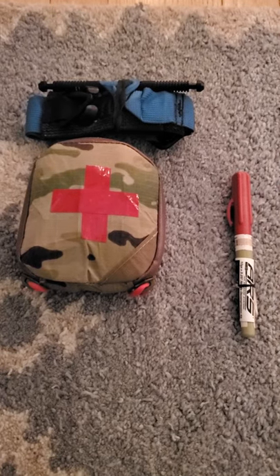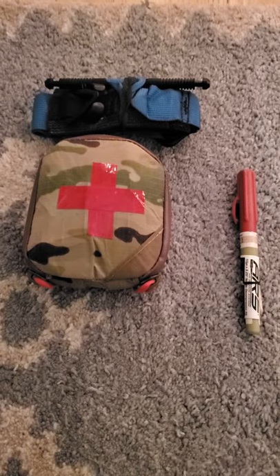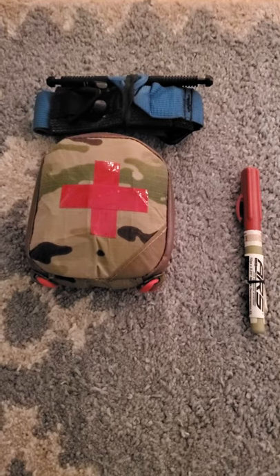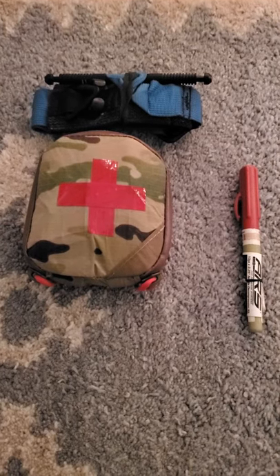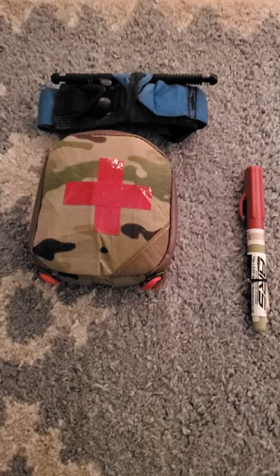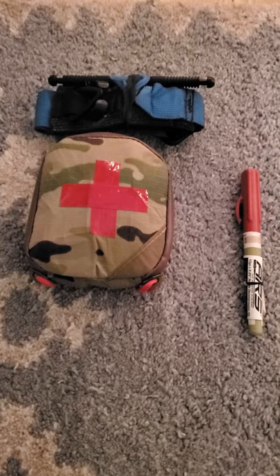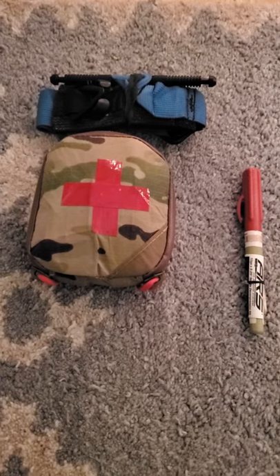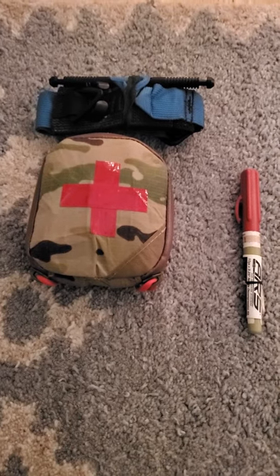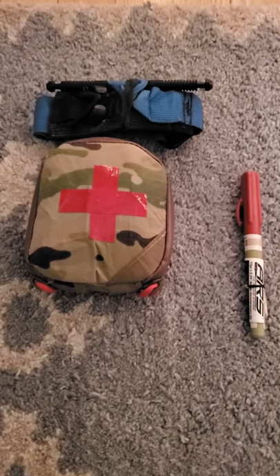Also compactness, comfort, and organization. This kit is obviously super compact. Crow — everything they do is pretty awesome, and they make some very unique items. Really nothing on the market kind of touches them. It really comes down to the construction of the pouch. This kit is lightweight and slim and actually pretty waterproof, but it's also oddly rigid and organizable for its size. It's no fatter than a standard wallet.